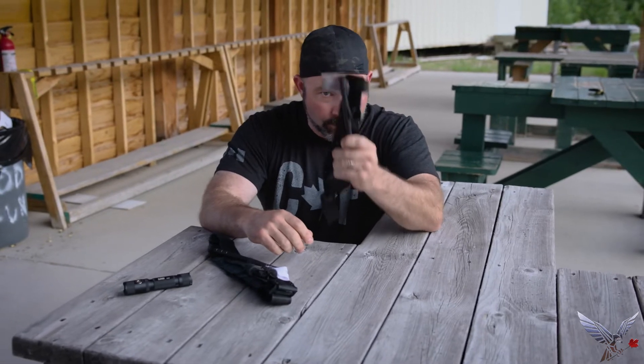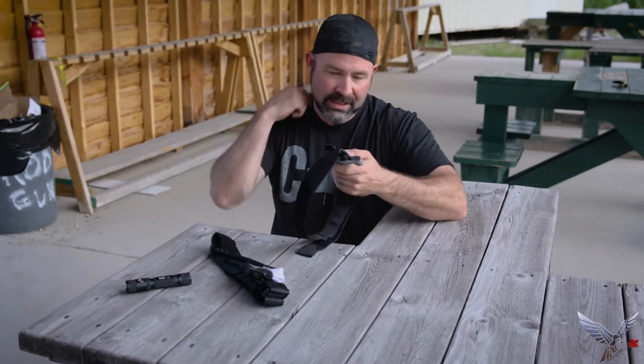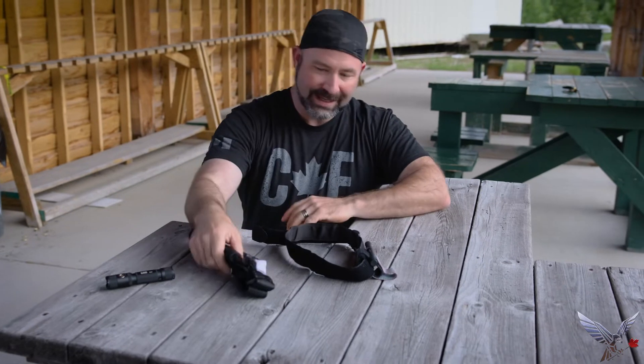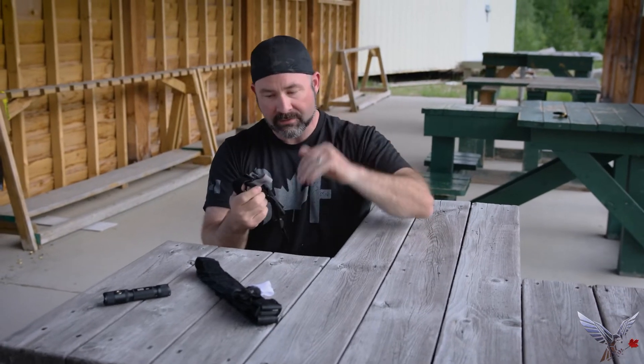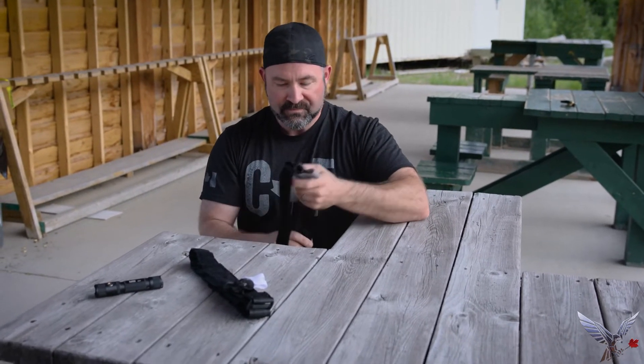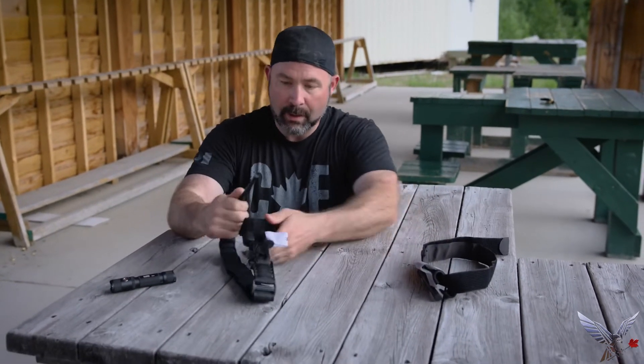In fact, if you've seen other videos I've done, this is the one I've put on over and over again — probably 12, maybe 13 times by now. Still going strong. We just finished filming a video testing this $9 tourniquet against this $45 tourniquet. In America it's a little less because of the conversion. Short story: this one works and this one is broken.